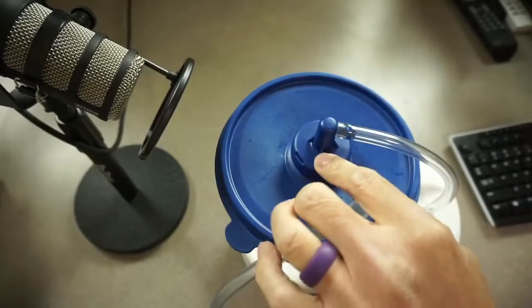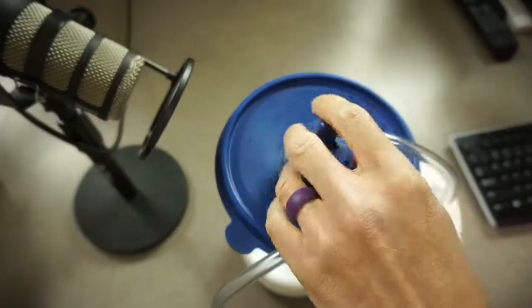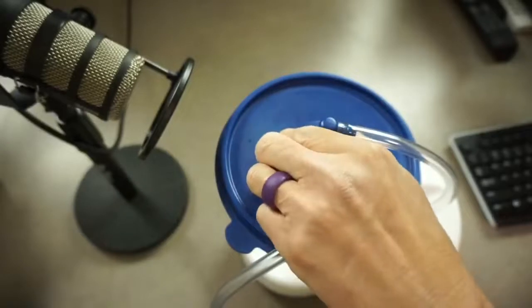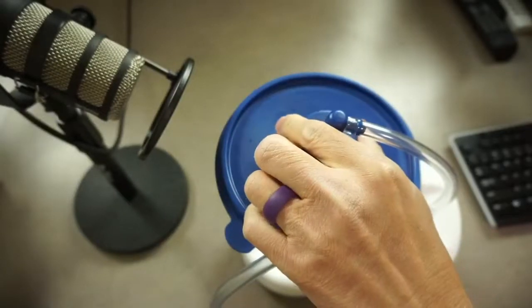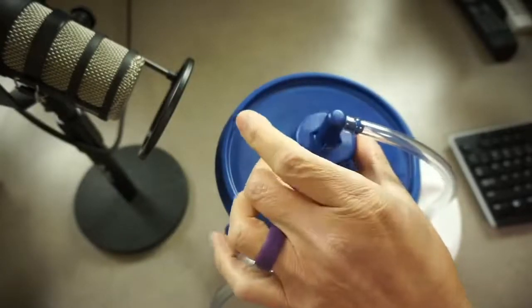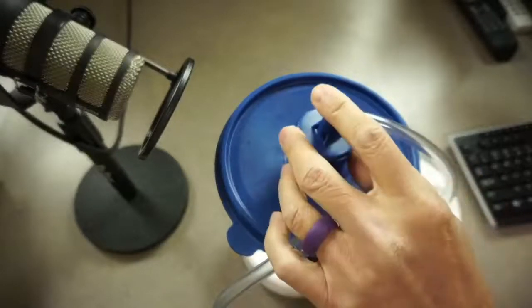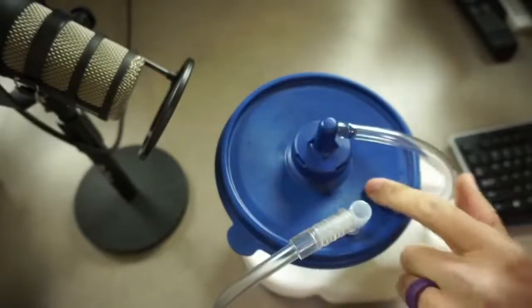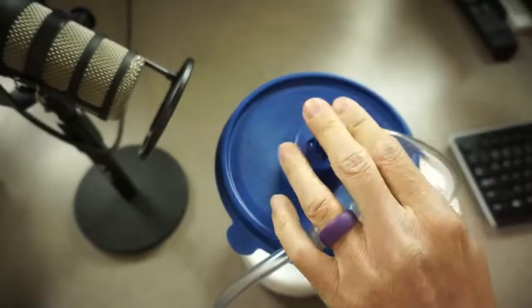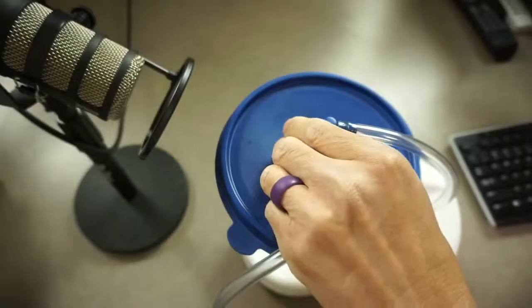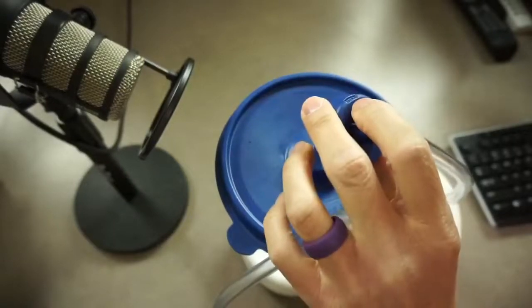So that's with it appropriately placed and sealed nicely, and I'm going to take it off now. Now, so that's loud. This is not. Now, the cap is on. It's nice and quiet, but when it's off, it's loud.